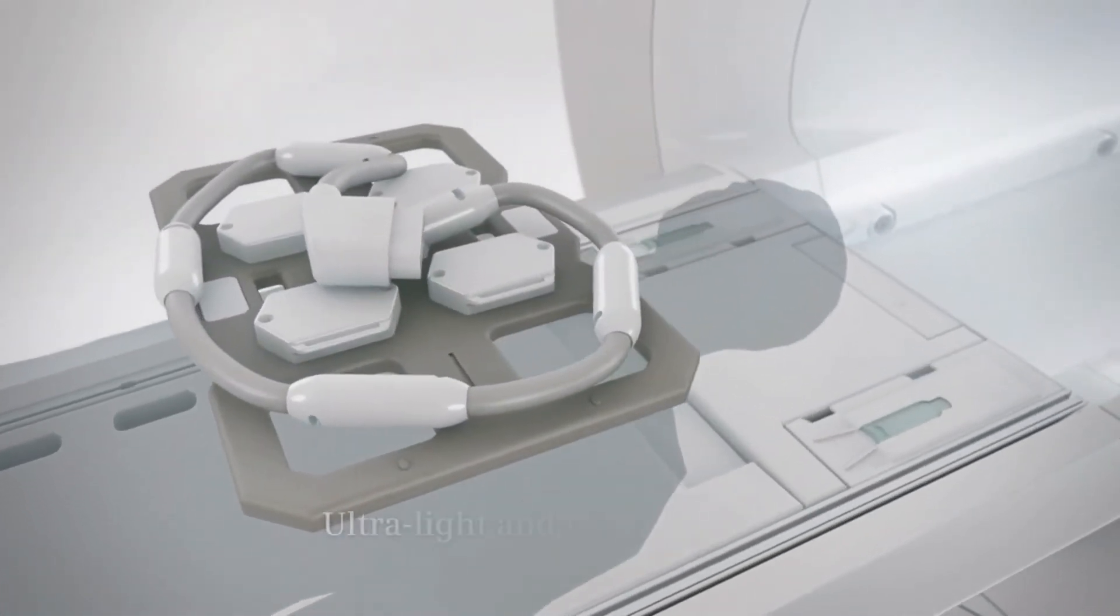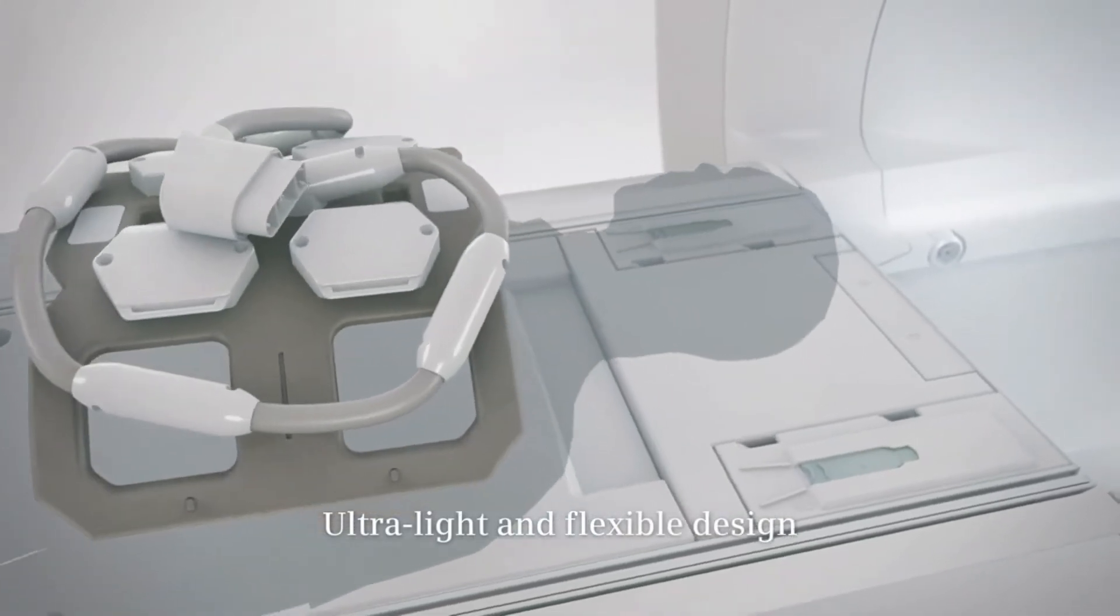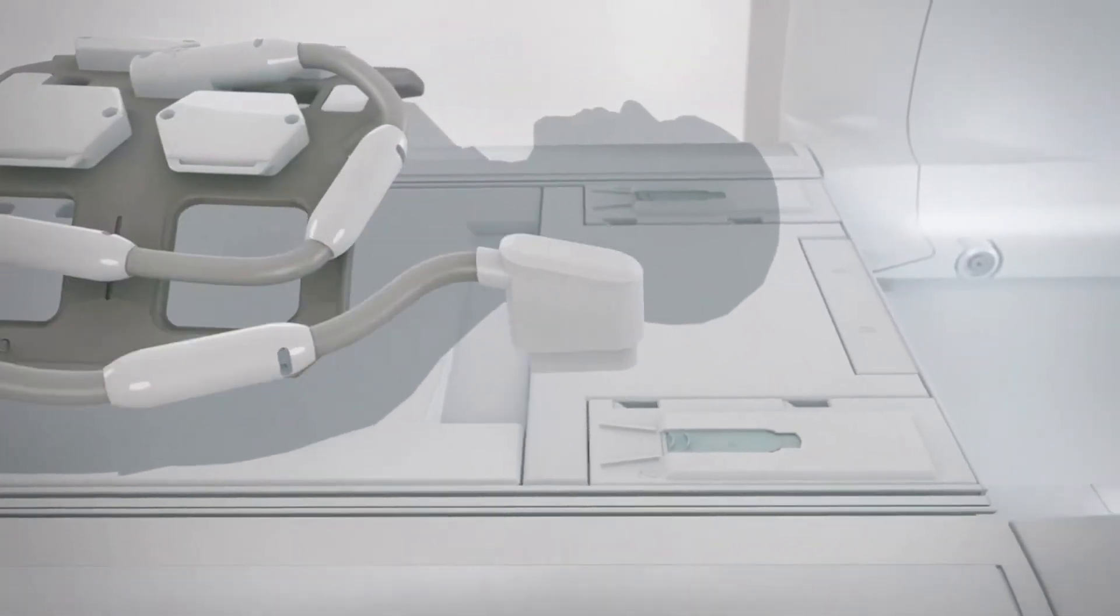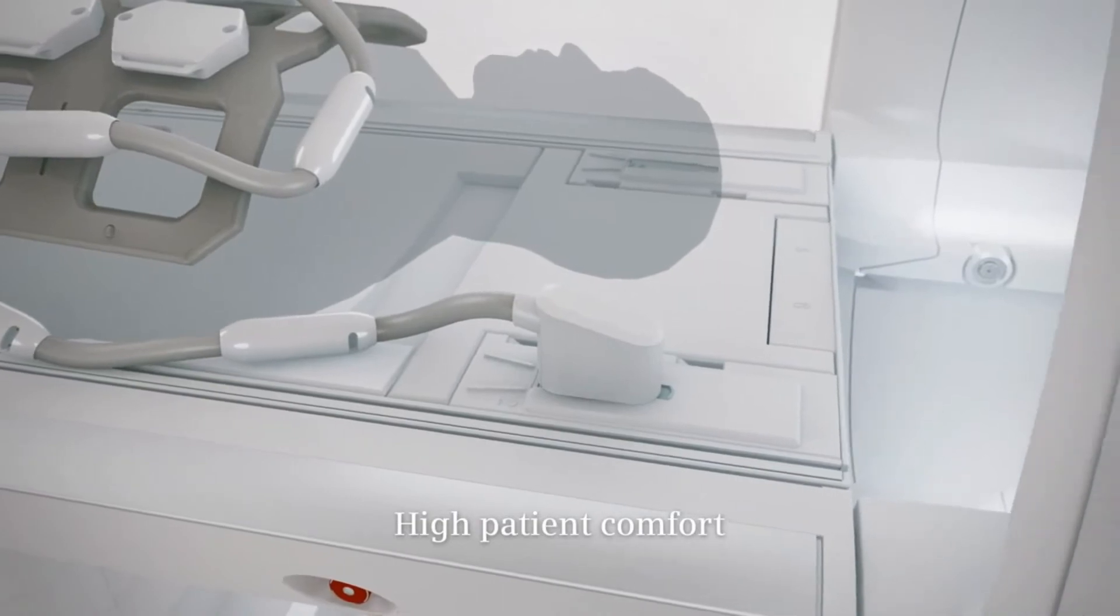The new body 6 coil has an ultra-light design. Flexible and adjustable usage enables high patient comfort.